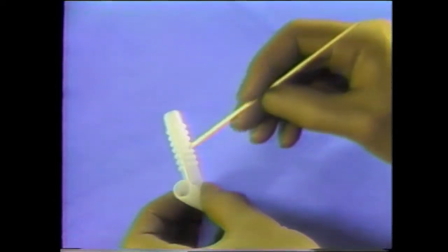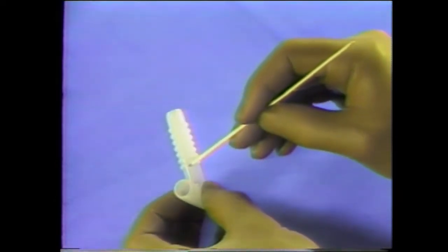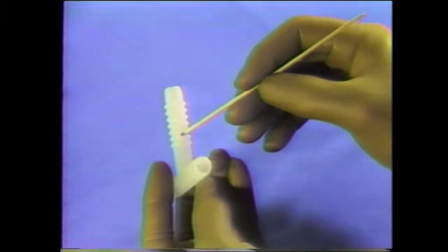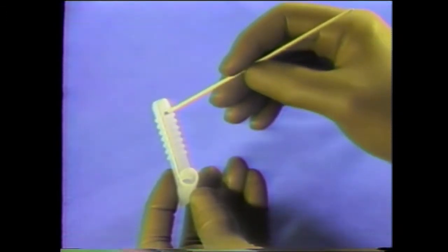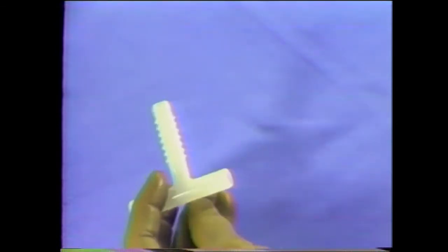You will note that there are two longitudinal grooves on the superior and inferior aspects of the extraluminal portion of the safety tube. These grooves distinguish the safety tube from the silicone tracheal cannulas which have only one groove on their inferior aspect.